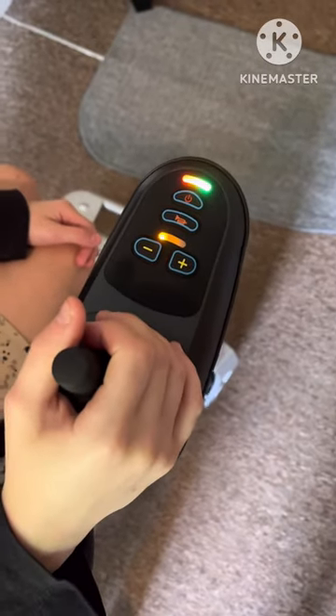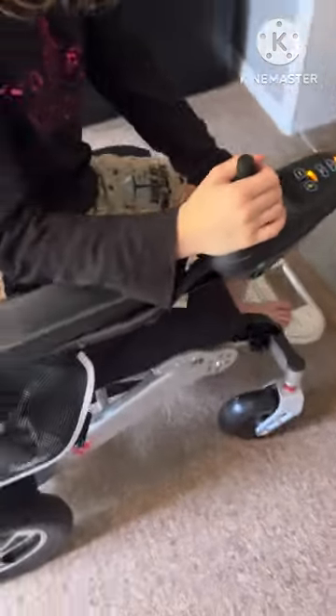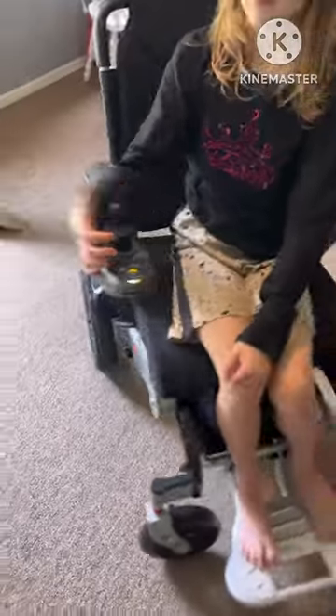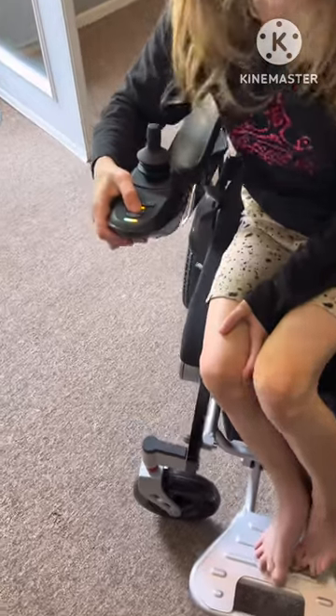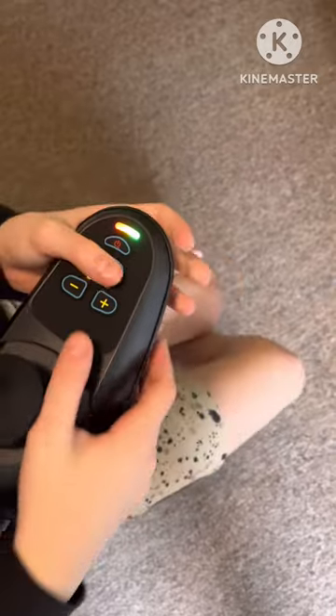And now enjoy the quietness. You still have the horn if you want it — the horn button still works. You can also re-enable it: just press the horn and the positive again.